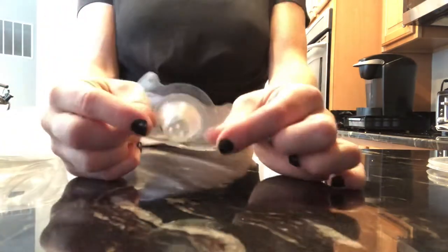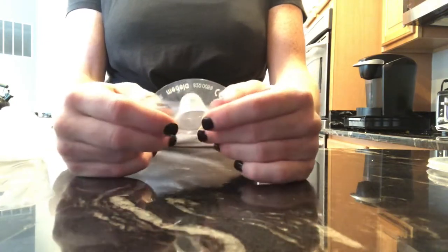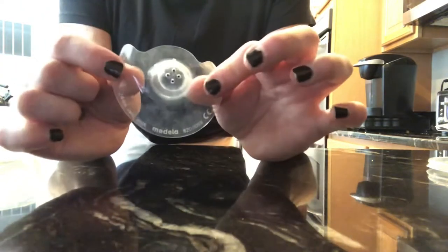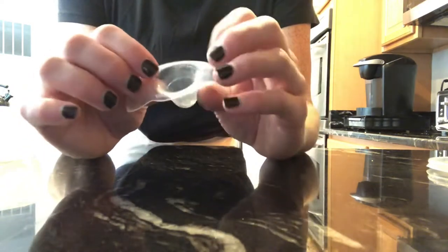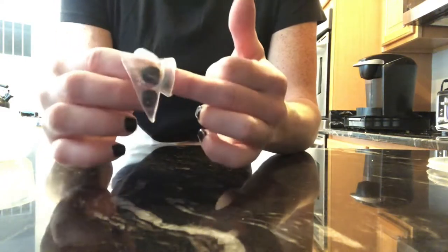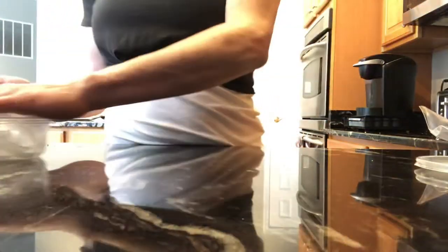That being said, if you are sore, the Medela nipple shield is great. It's in the box so I'll mention it — this one isn't very clean because it was just stored. A good tip is wetting this a little bit with warm water, and if you turn it inside out when you're putting it on your nipple, it creates a suction base. Good to know. All right, that's the Medela.